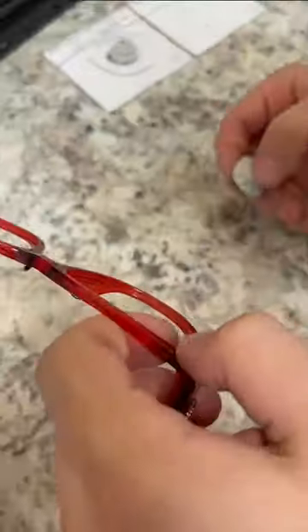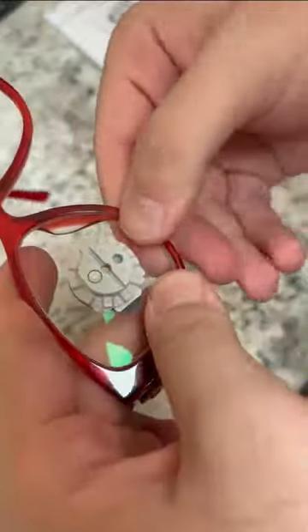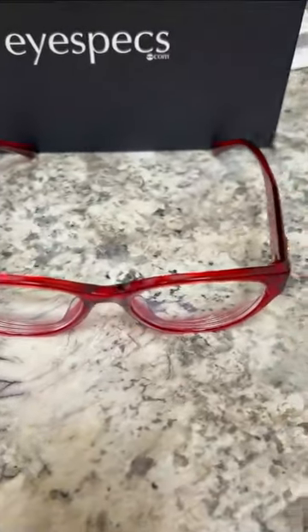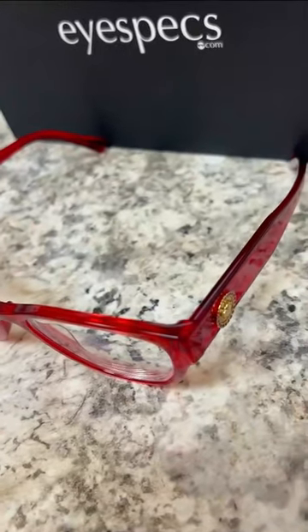The lens comes out nice and clean, and the optician wipes off all the water on the lens. He then fits the lenses into the frames. Rachel, you will look like a million bucks with these on. Enjoy them.